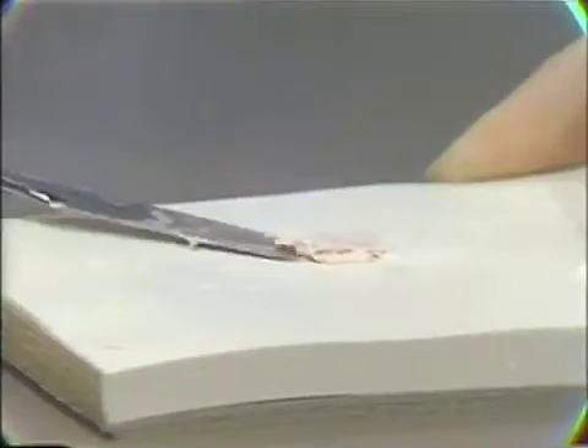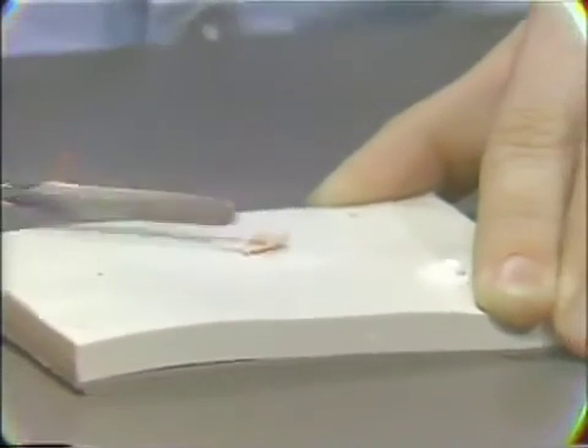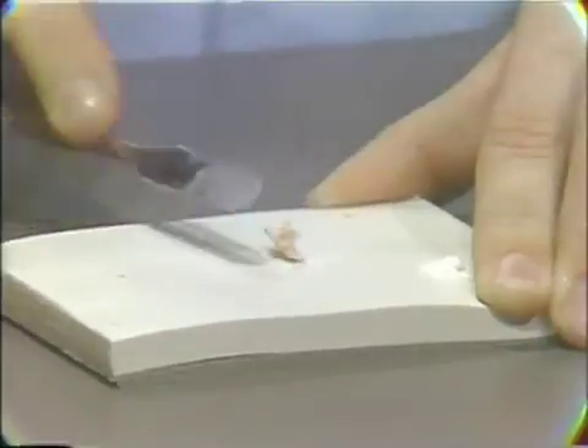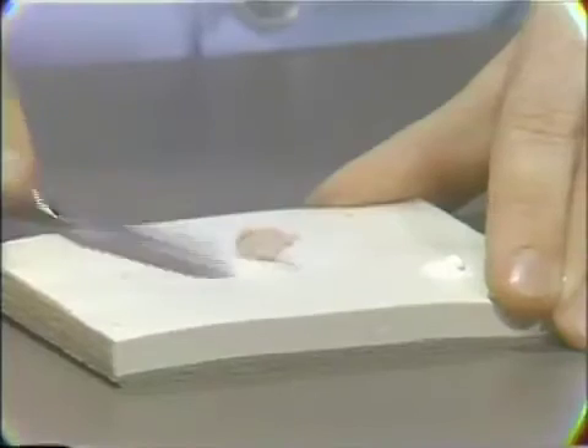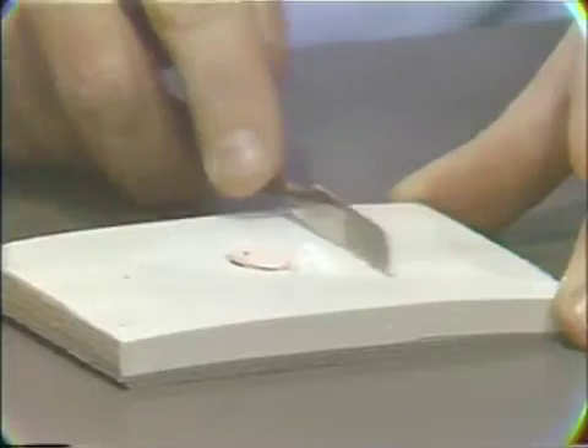At this point, the cotton fibers can be brought over and folded right into the mix. The entire fiber should be wetted with the material so that there is no chance for small strands of fiber to be loose and collect moisture or saliva once the material is inserted. The material can then be brought together and the additional small scoop of powder brought over on the pad.